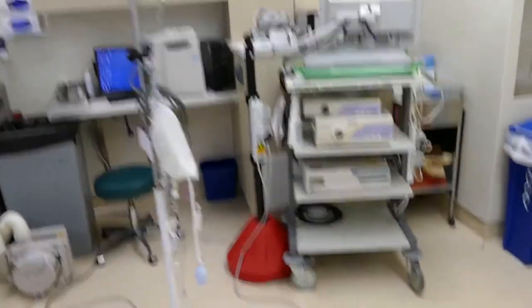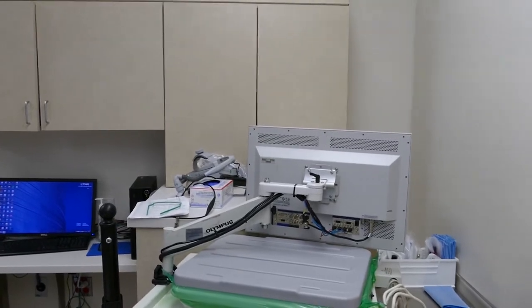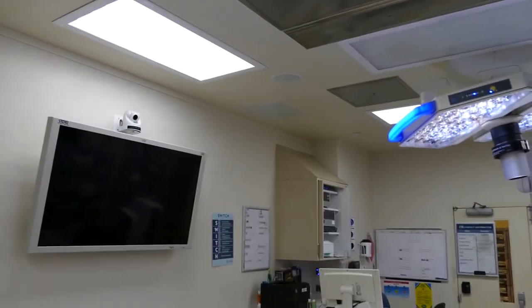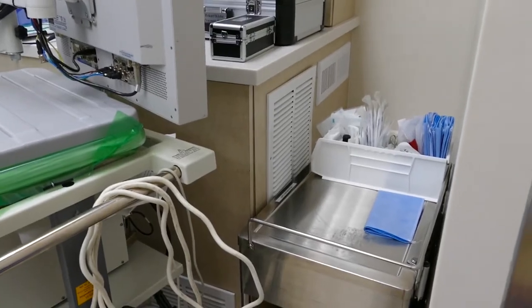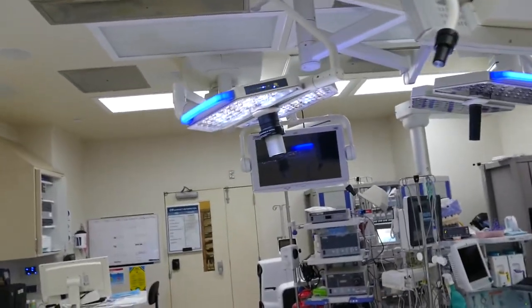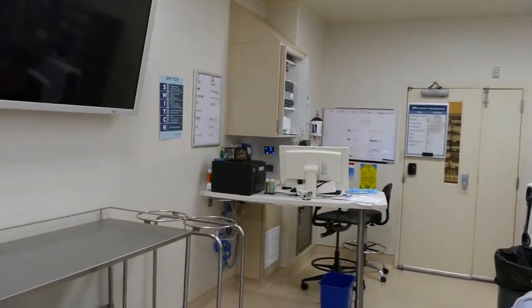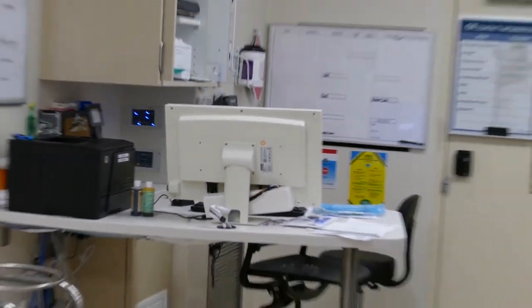You can see that they've already got this room prepped for the first case of the morning. Over here is an Olympus tower — they're going to use that for doing flexible scopes. This cabinet behind it actually has all my video scalers, which upscale the video images and put them into high definition so they can be routed to these overhead monitors. Right behind this is the video cabinet — that giant cabinet down there has all the audio and video equipment. You can see this room is pretty current: we have LED lights, and LED lights overhead right here and right here. They can control a lot of that from over there, or pop into the touch screen and control the lights from there.